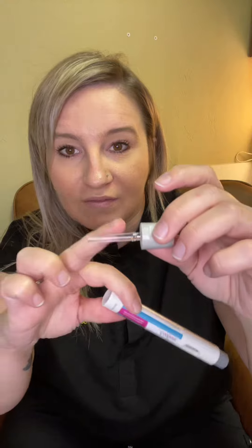So when you get it, you'll take off the gray cap at the end. Yours won't have this little thing — that's just for demonstration purposes. So you take off that gray cap and then hold it against your stomach or wherever you're injecting. Some people prefer to inject in the top of the thigh because it's firmer, so it's easier to do that.